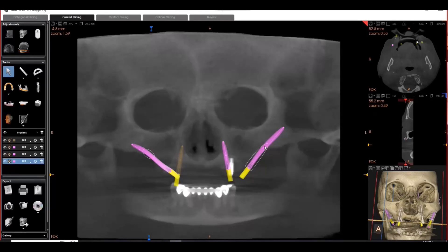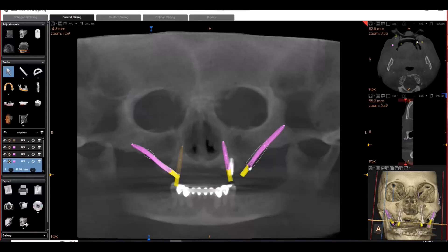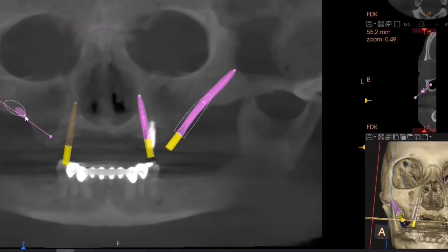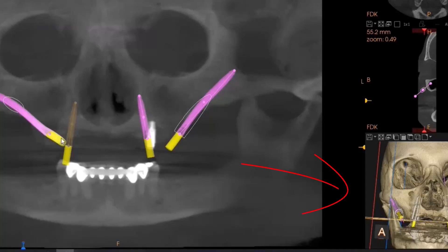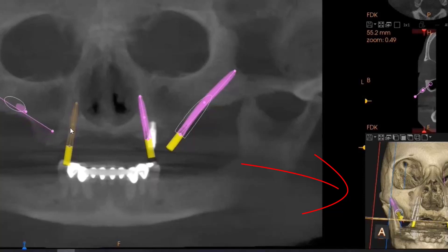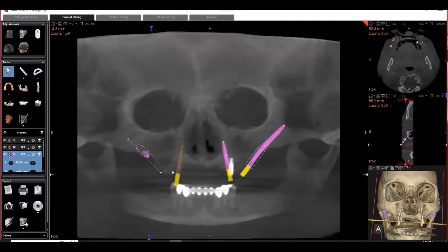So I first wanted him to thicken up the slices in the panoramic view so that we can actually see everything a little bit better. You can see he's having a little bit of a hard time placing the implants exactly where he wants them — the implant is moving only on one plane. So we wanted to scratch that and replan it, but first we're going to create a custom implant.